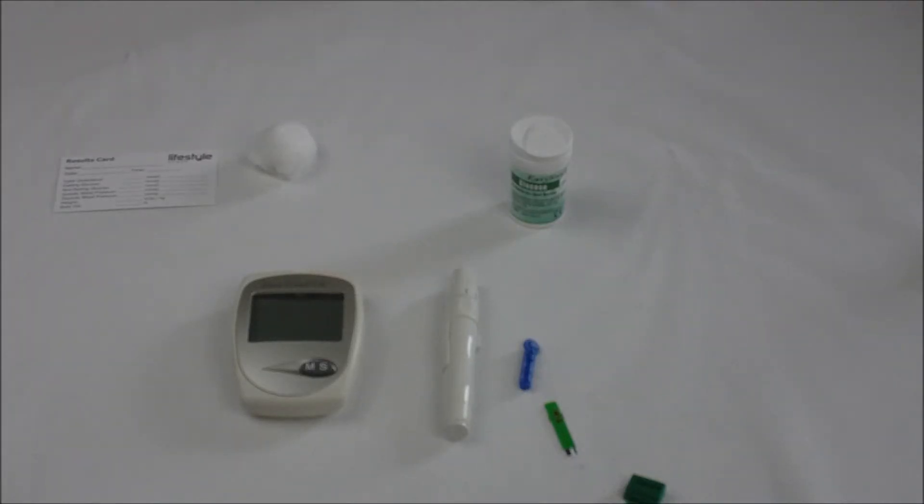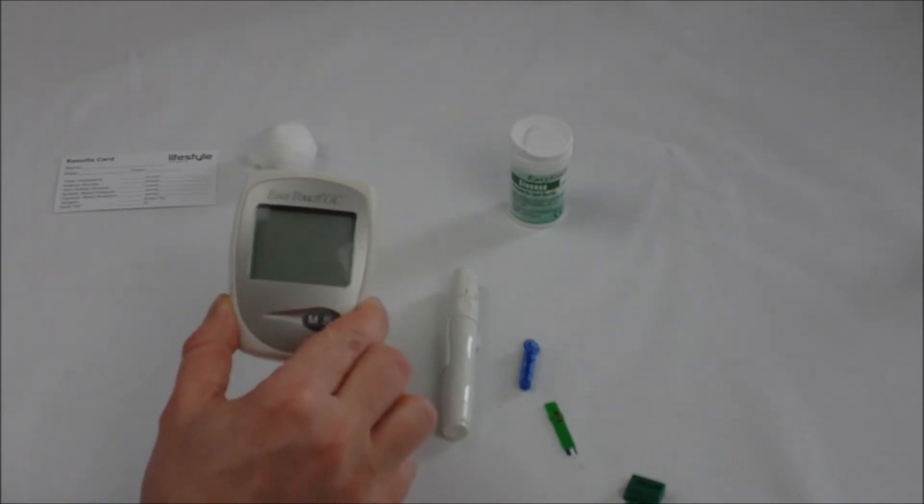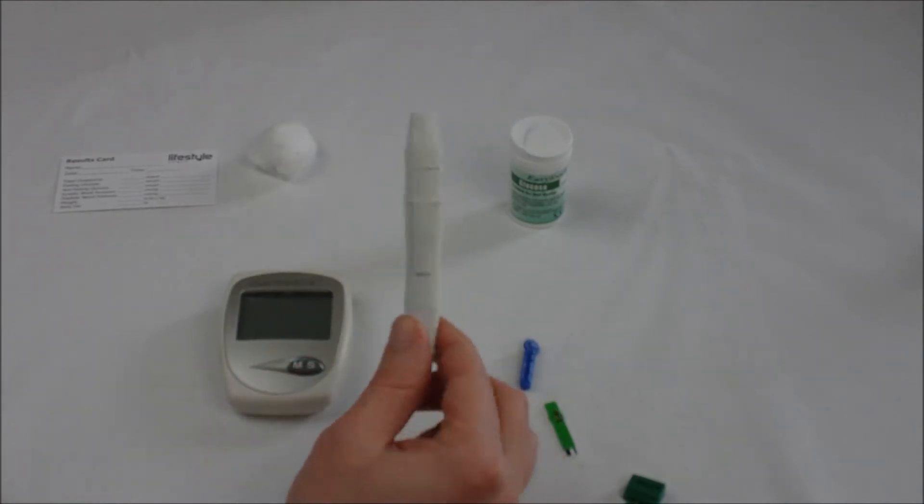In this video I'm going to show you how to measure your fasting blood glucose level. To do this you'll need your Easy Touch glucose and cholesterol monitor, a lancing device, and a lancet.